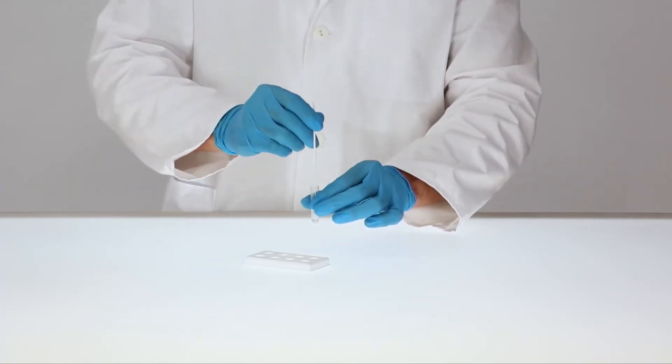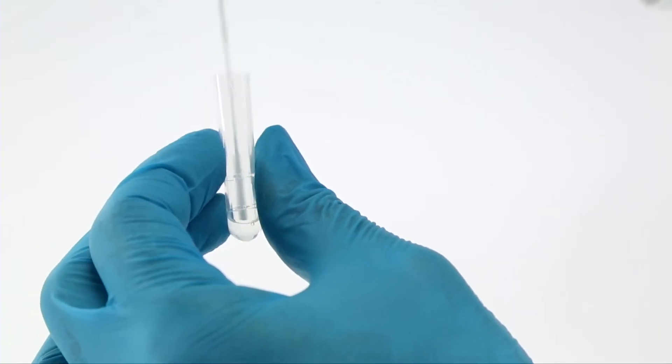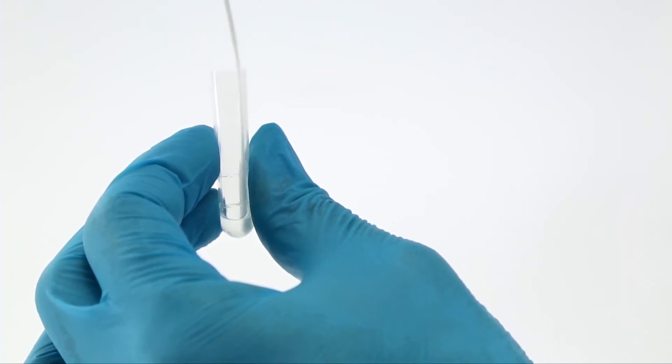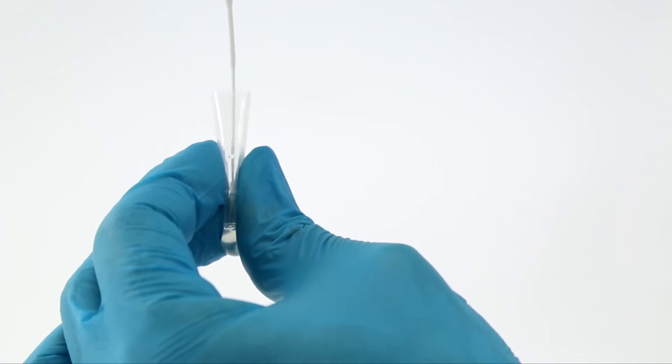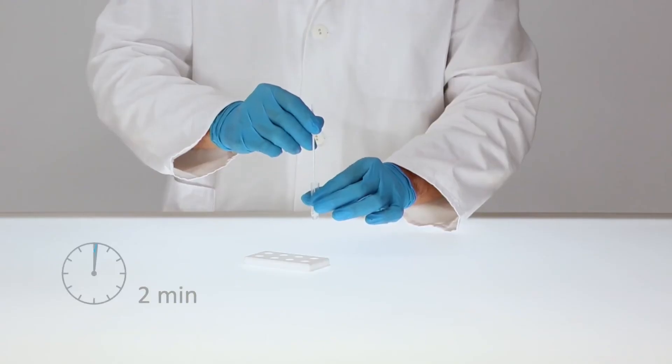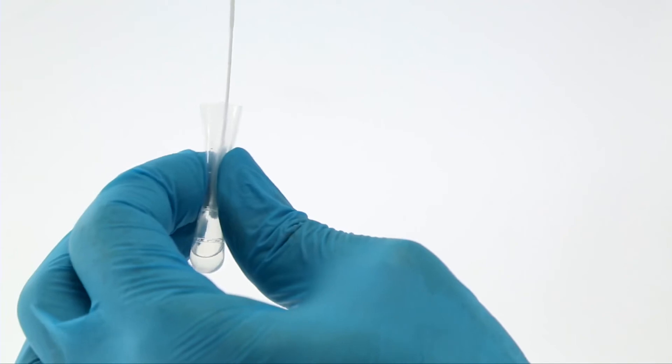Insert the swab with the collected specimen into the tube. Swirl the swab and squeeze it by compressing the swab and extraction tube 10 to 15 times. Then let the solution stand for 2 minutes.